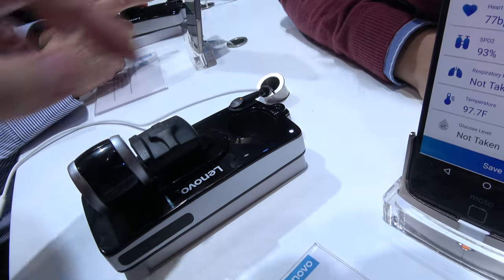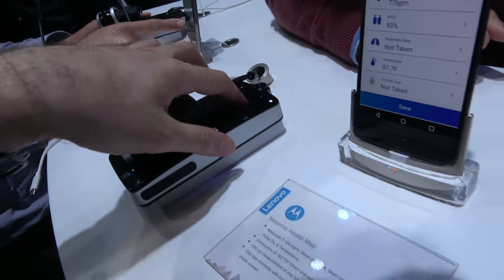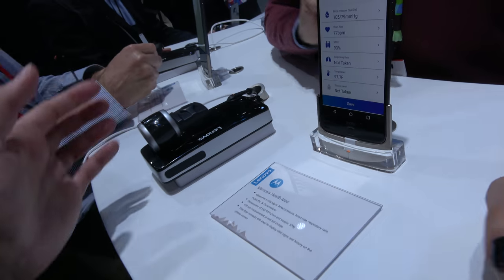It's also great for the elderly market — that's a no-brainer. You definitely need to buy this phone and this mod right here. It's a great bundle. We also have a digital infrared thermometer that we've been on the market with for two and a half years. The hole here in the mod is mainly for the camera.